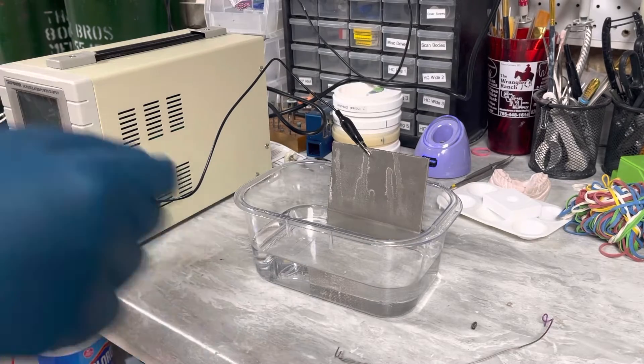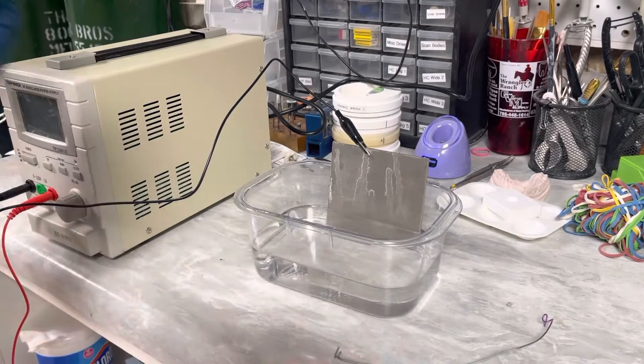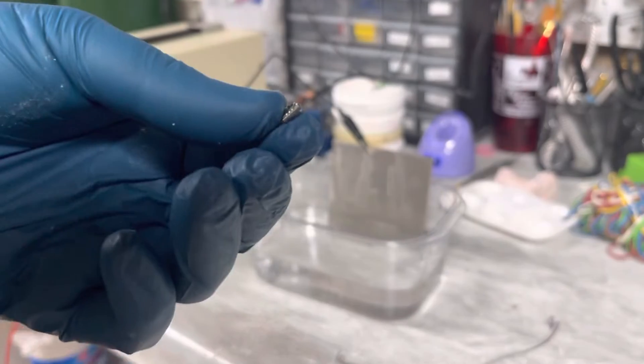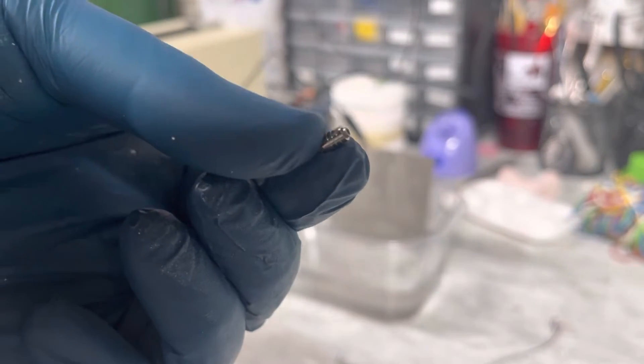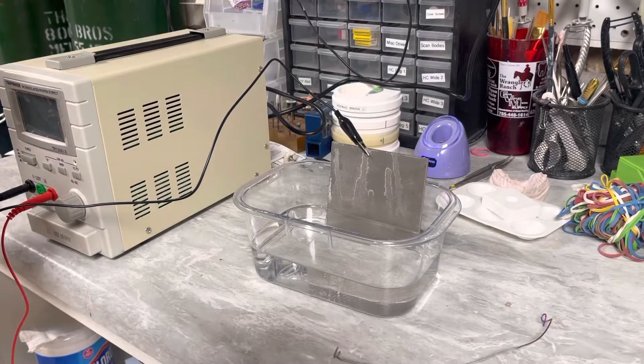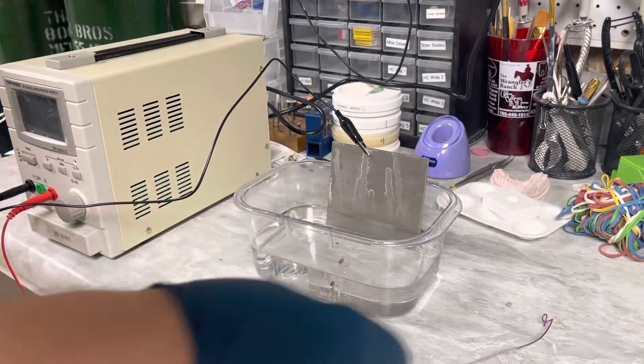And so here is just a standard old stock abutment, titanium abutment right there. So you can see it's the classic silver color, and so I'm going to drop it into our solution.